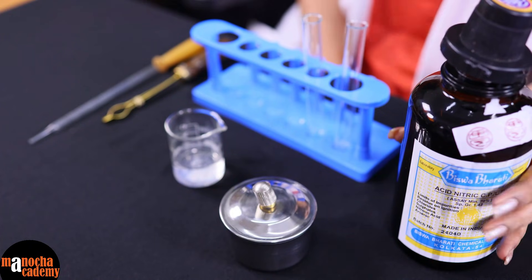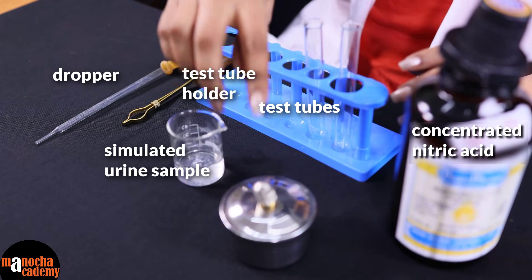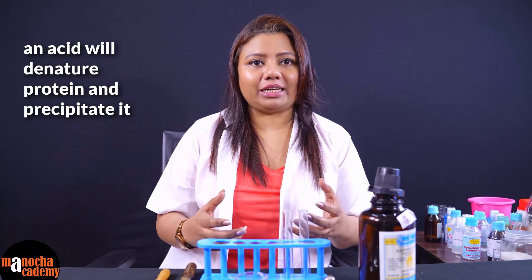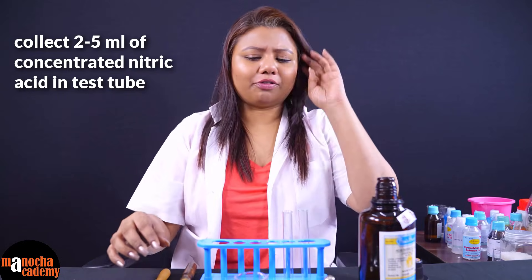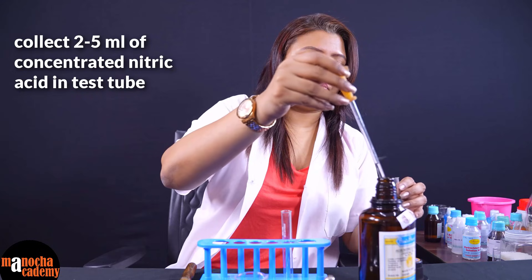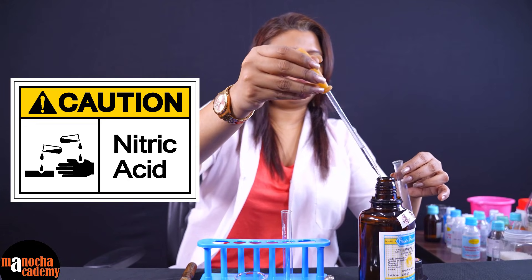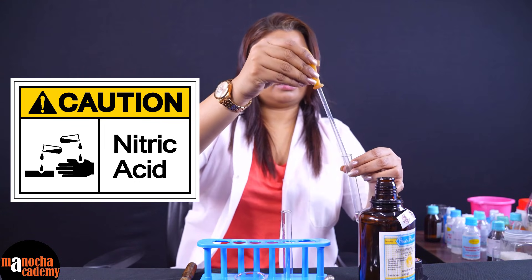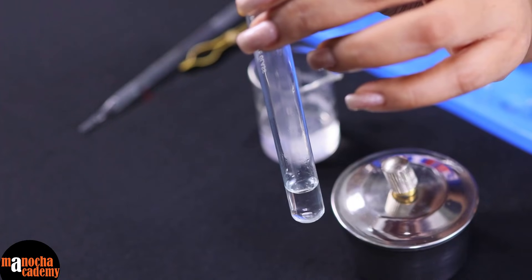The next experiment is also to test the presence of protein in urine. This test is known as Heller's test. For this, we will be requiring concentrated nitric acid — be careful with this reagent — a urine sample, test tube, test tube holder, dropper and a spirit lamp. This experiment works on the same principle: an acid denatures the protein and precipitates it. We are going to take about 2 to 5 ml of concentrated nitric acid in a test tube. We have to be very careful because this is concentrated and can cause serious injury if not handled properly.